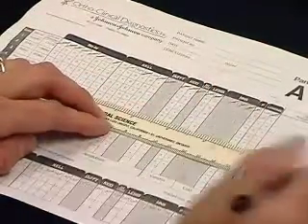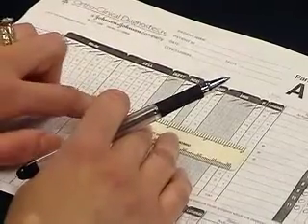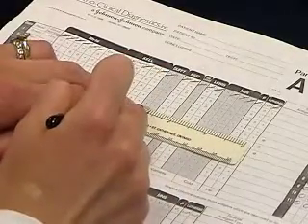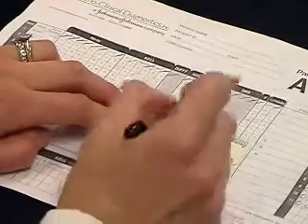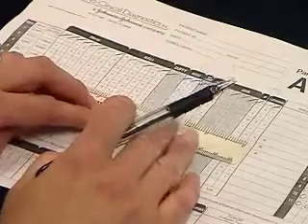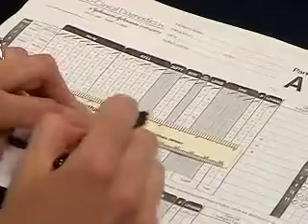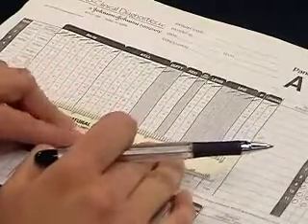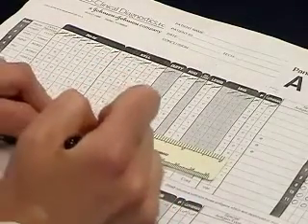Number 5 is also a negative reacting cell. What do I have left? Here we have Duffy B, again heterozygous. So we cannot rule that out. And S is also heterozygous, so we cannot rule that out yet either. Nothing that we can rule out on this cell. Cell number 8, I'm sorry.